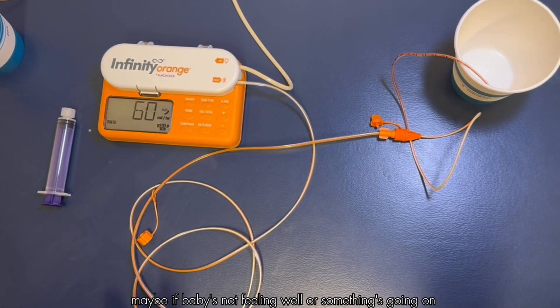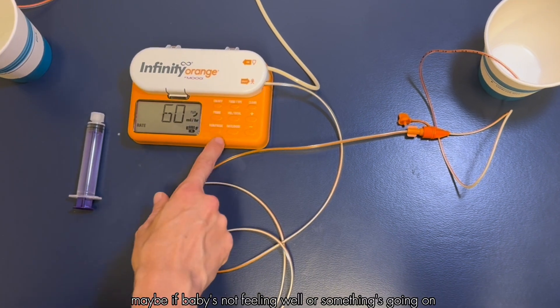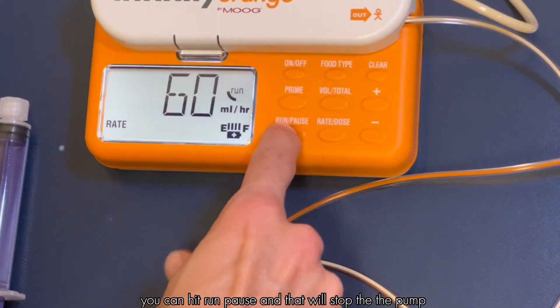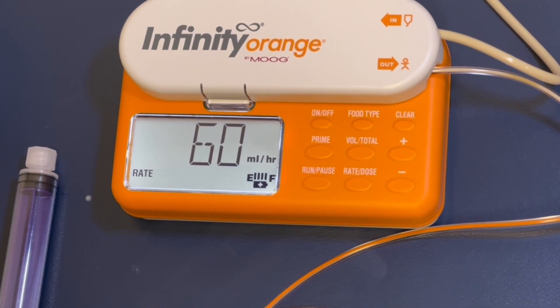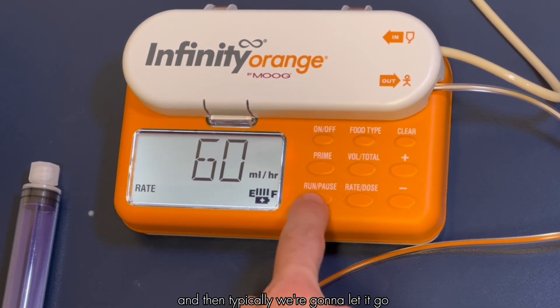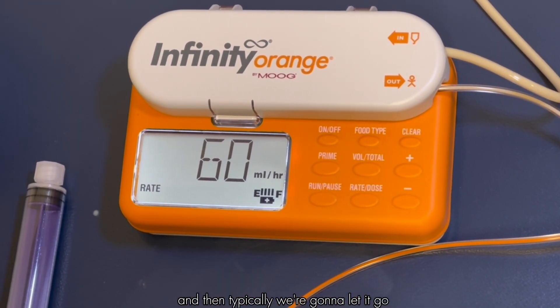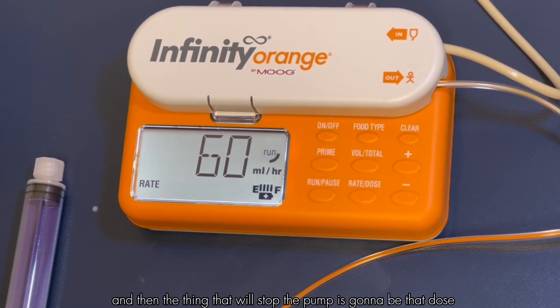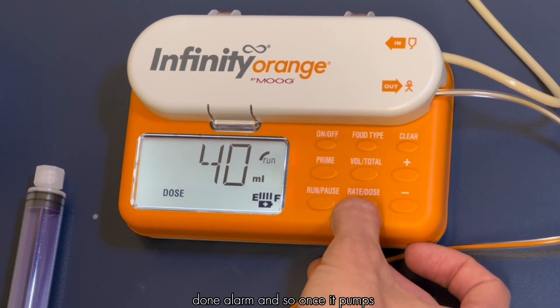If you need to stop it for any reason, maybe if baby's not feeling well or something's going on, you can hit run pause and that will stop the pump.